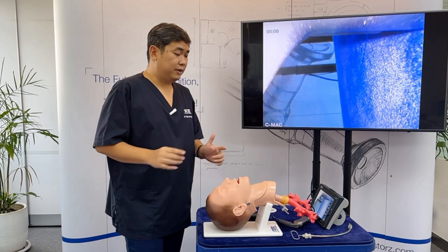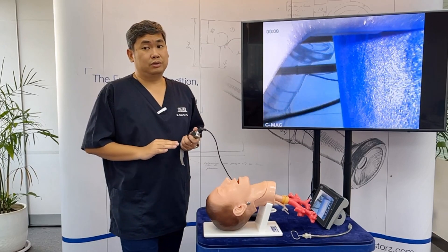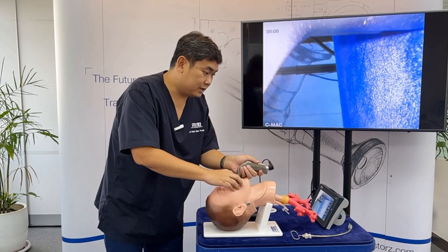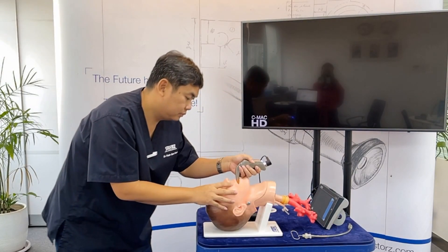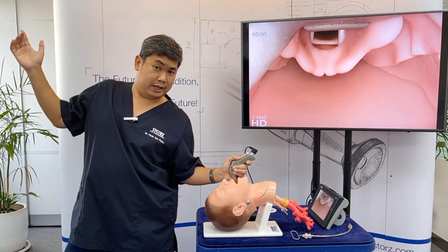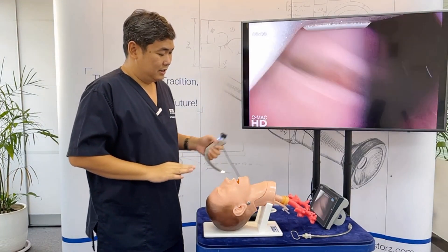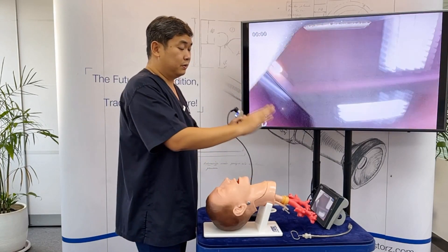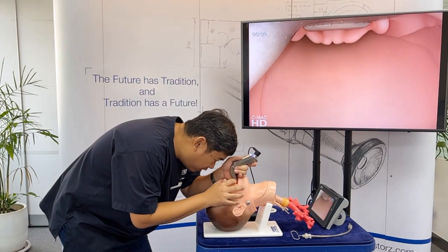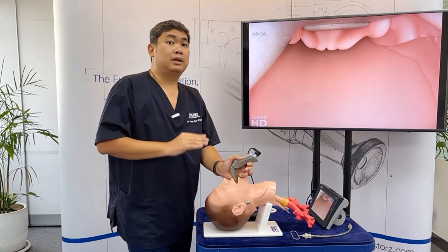Another advantage of having a big screen is the ability to give better instruction for intubation. Previously, a consultant would perform direct laryngoscopy and ask the trainee to look at the vocal cords from an awkward angle. Nowadays, everyone can see what you're doing during video laryngoscopy, and you can ask trainees to perform direct laryngoscopy while you monitor the screen to check if what they're doing is correct.